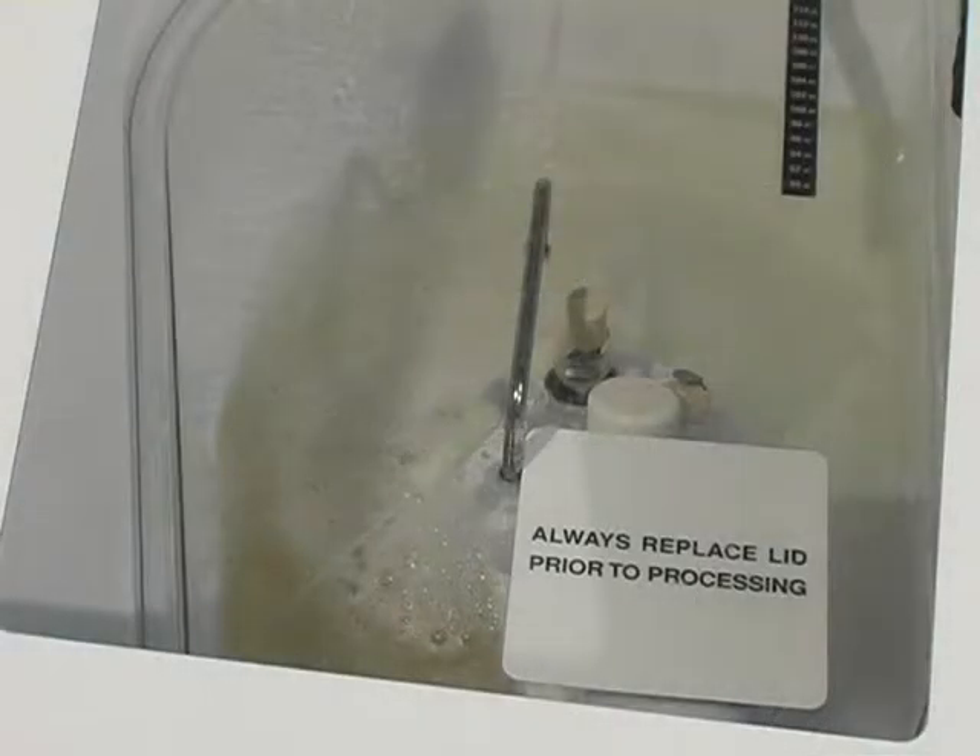Section 8 shows how to change the water and air filters, treat the water lines, maintain the printer paper, and prepare the alcohol and detergent reservoirs. Section 9 demonstrates how to program your unit, create custom disinfection cycles using the control panel, set the time and date, and review common setup functions. Section 10 covers alarms, what they mean, what to do, and whom to call.